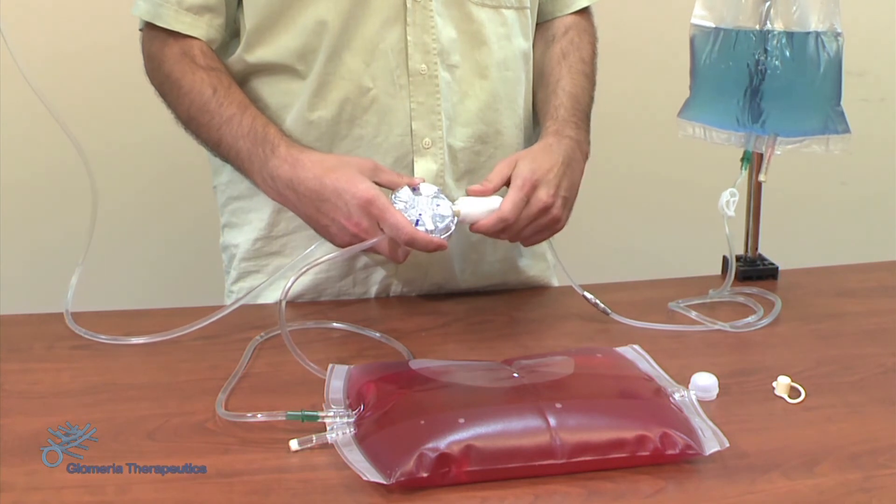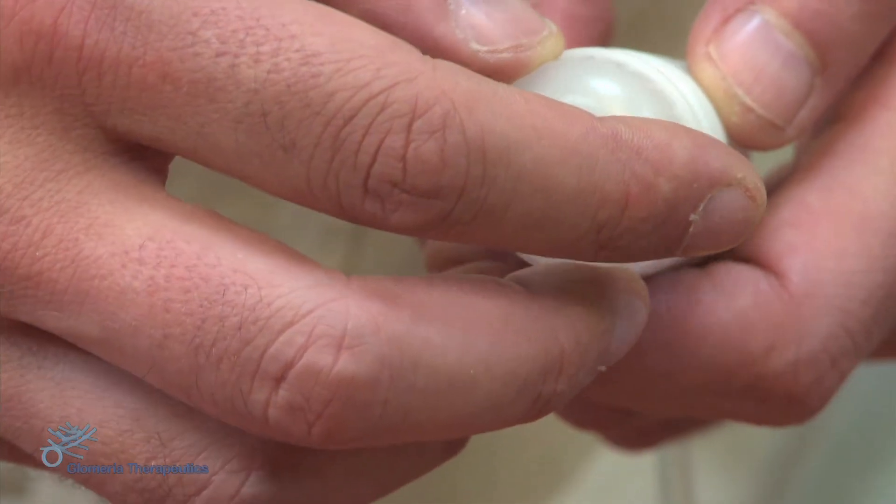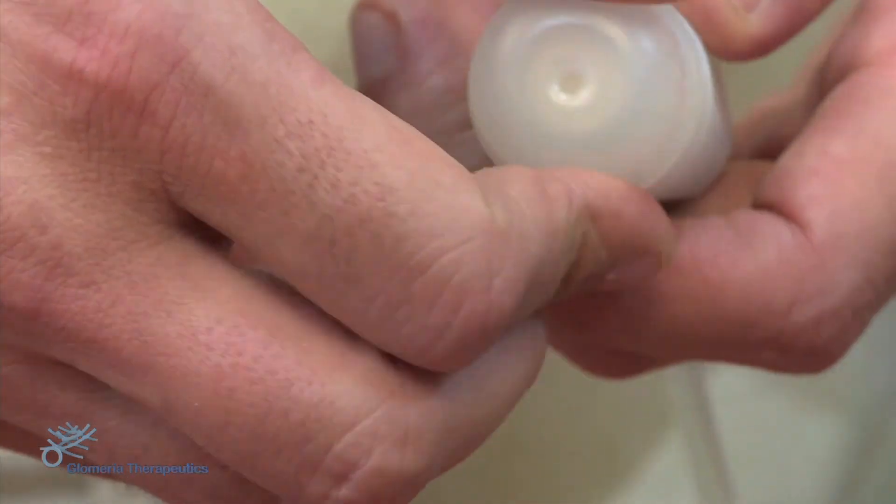Disconnect by unscrewing the Desmo patient set from the Desmo connector. Close the extremity of the connector with the cap for the patient set.